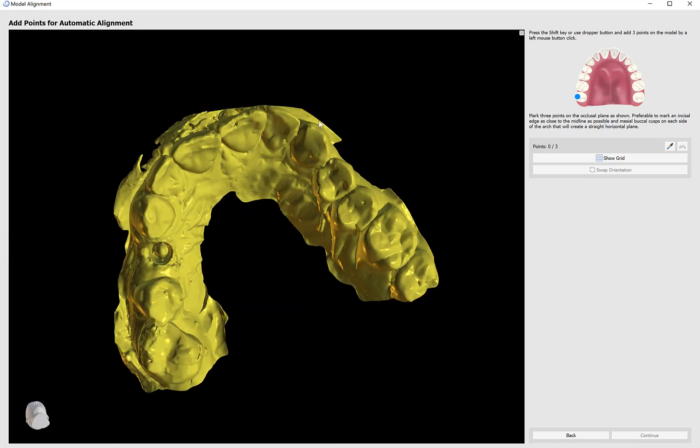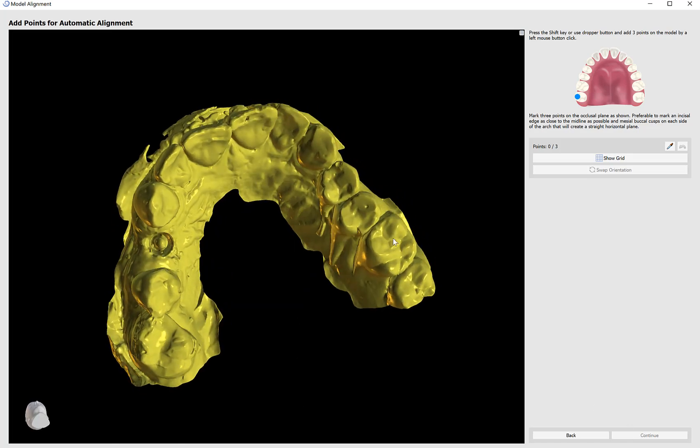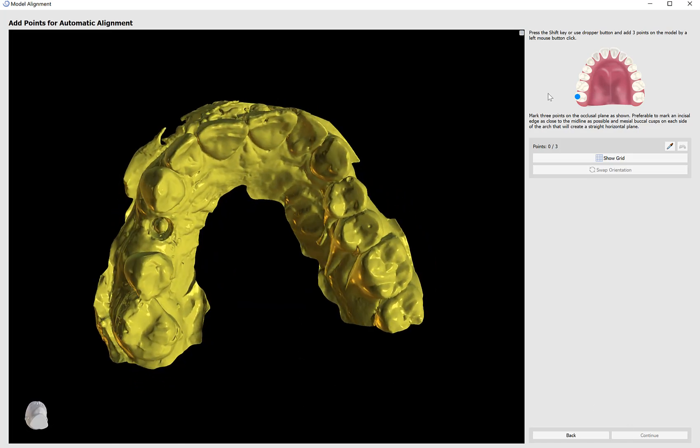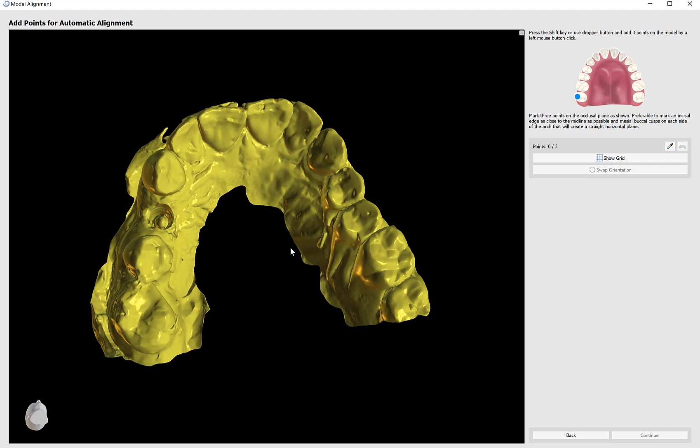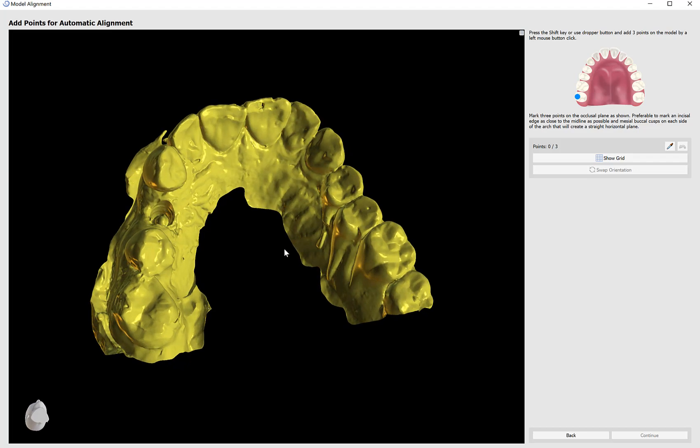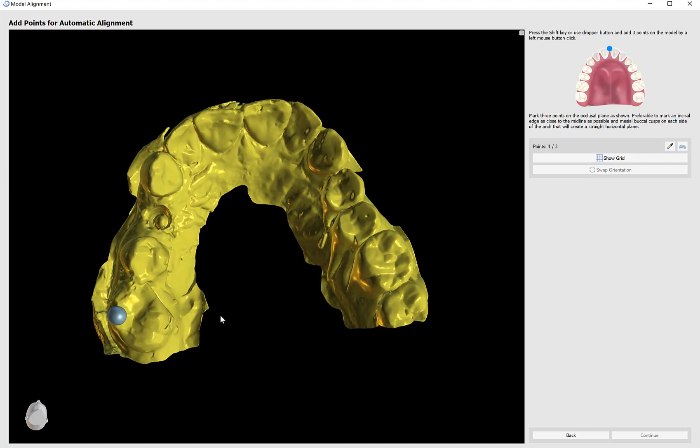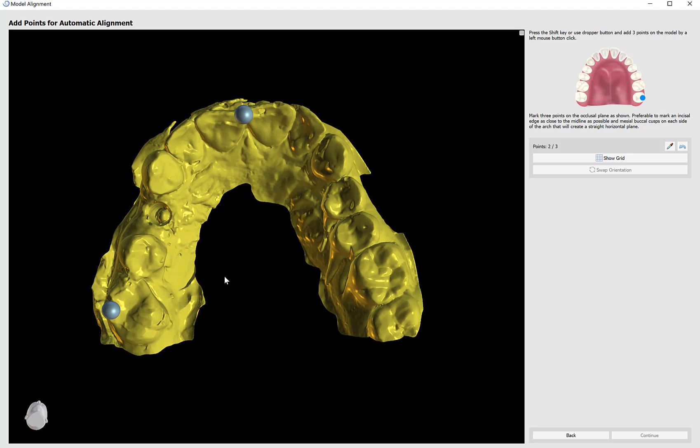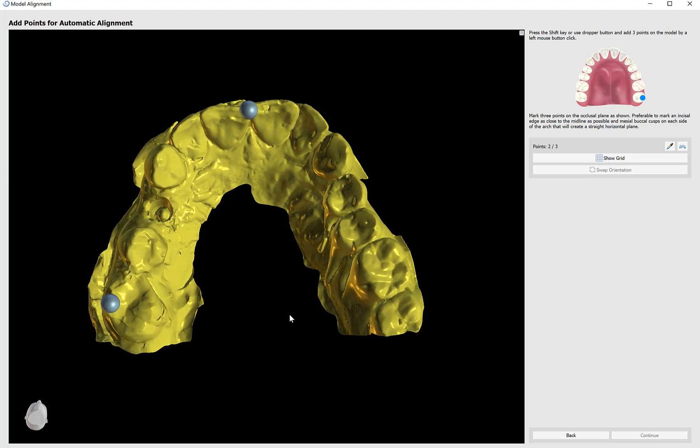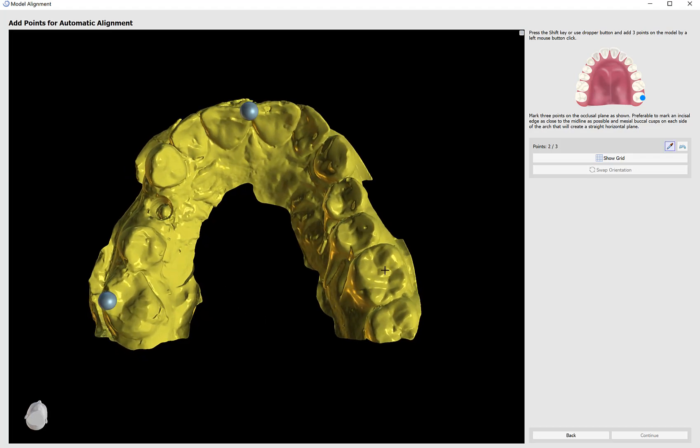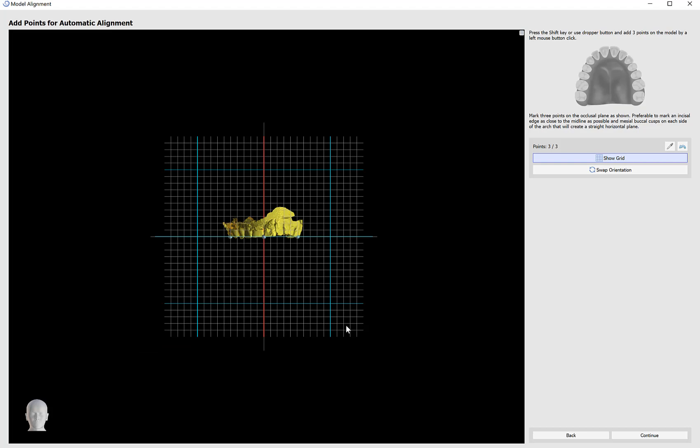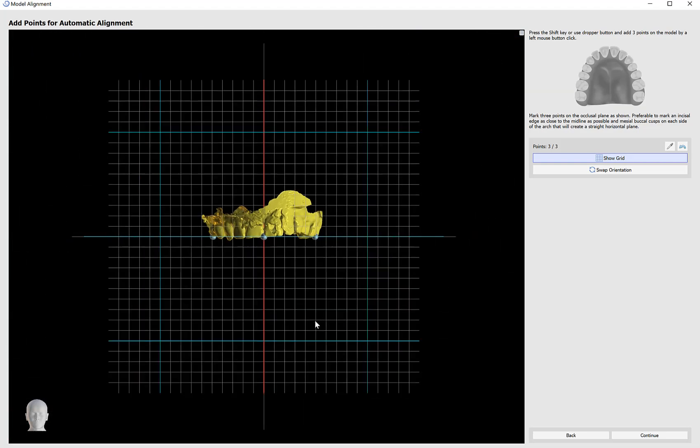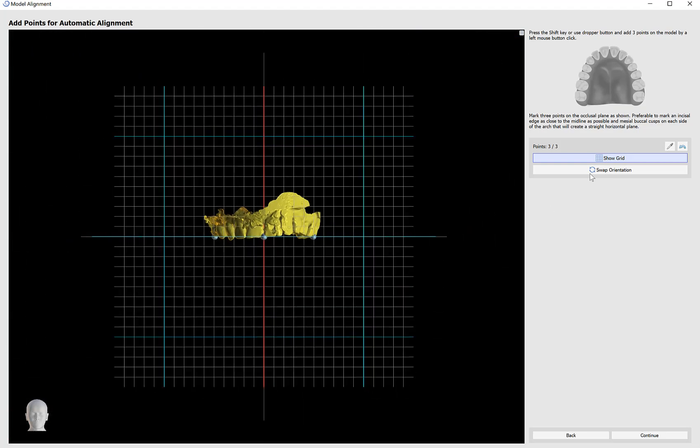Here I'm going to follow the image that appears on the top right of the screen, hold down my shift key and mark my first dot molar, mark my second dot as close to the middle as possible and my third dot on the opposing side of the arch from the first dot. Once I have those points marked, the software automatically aligns the model to the grid.